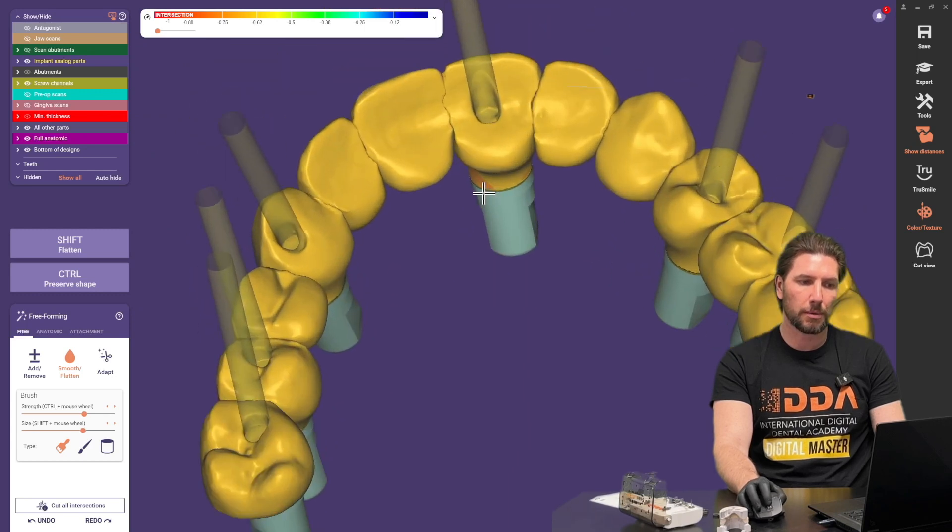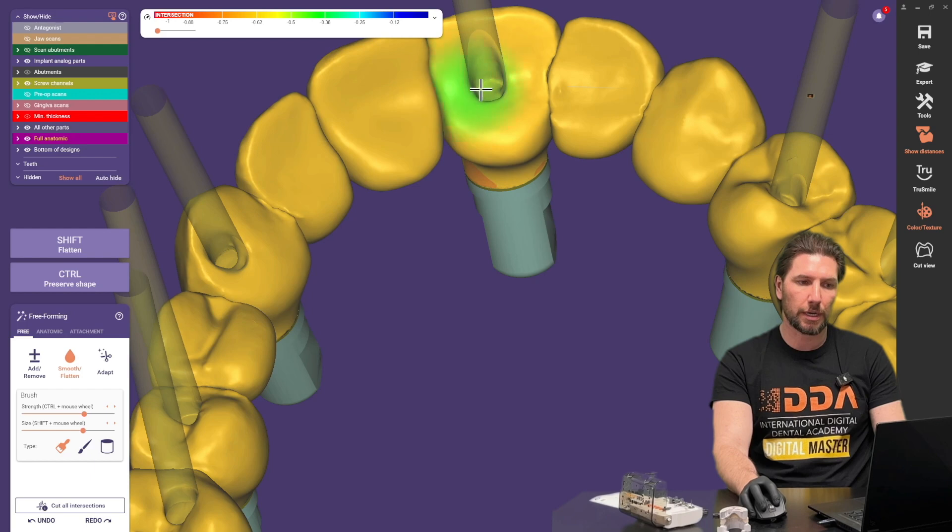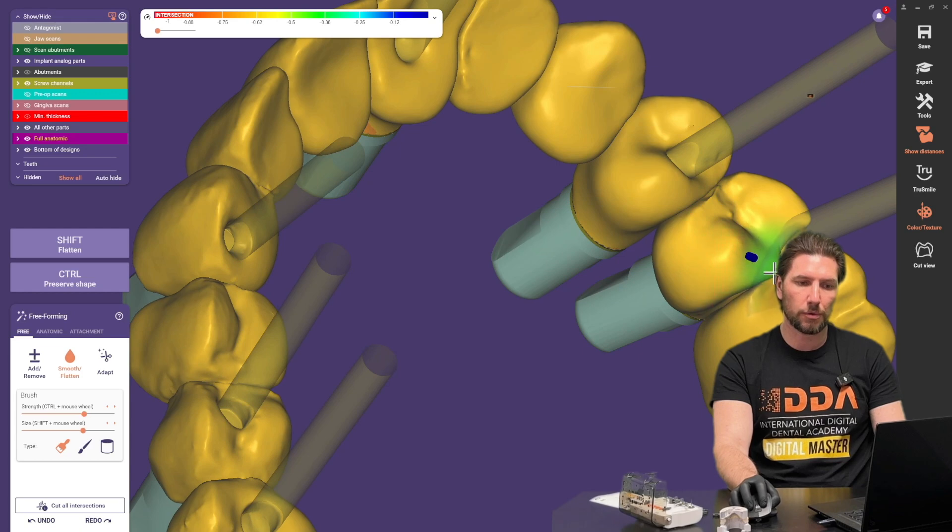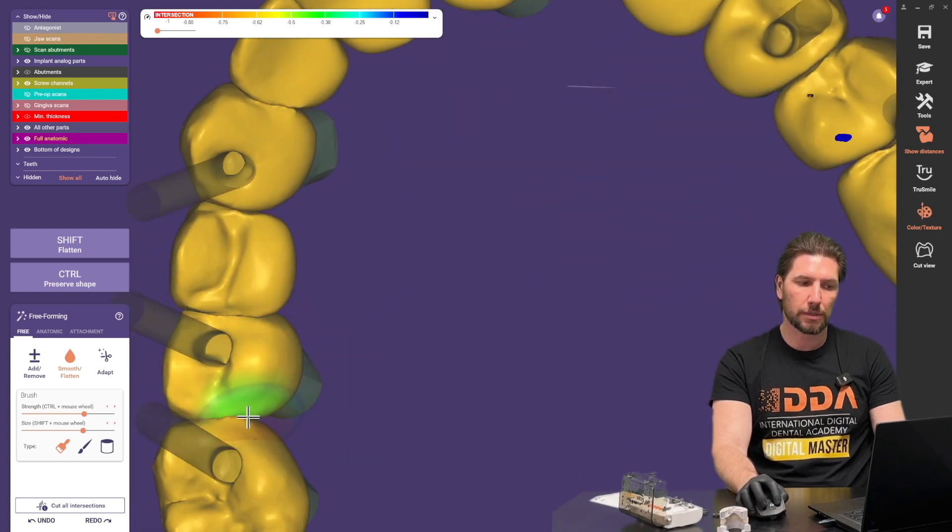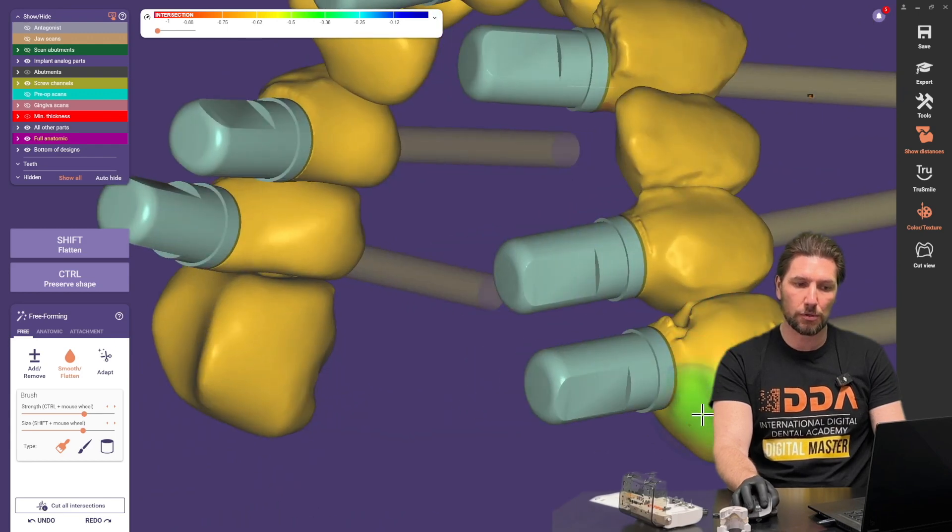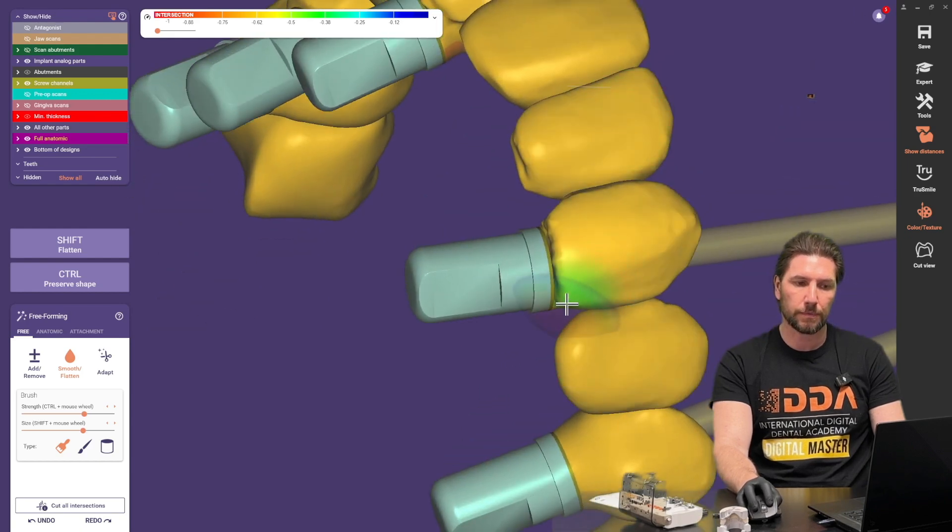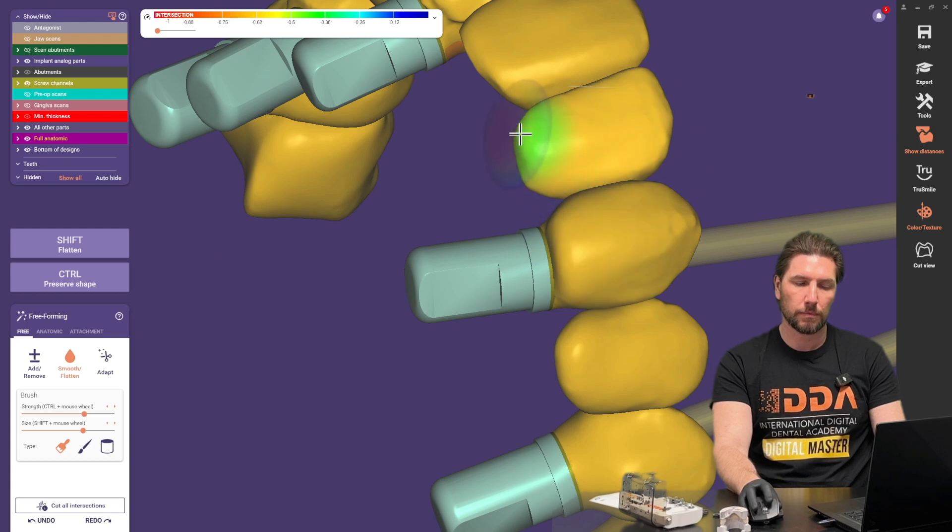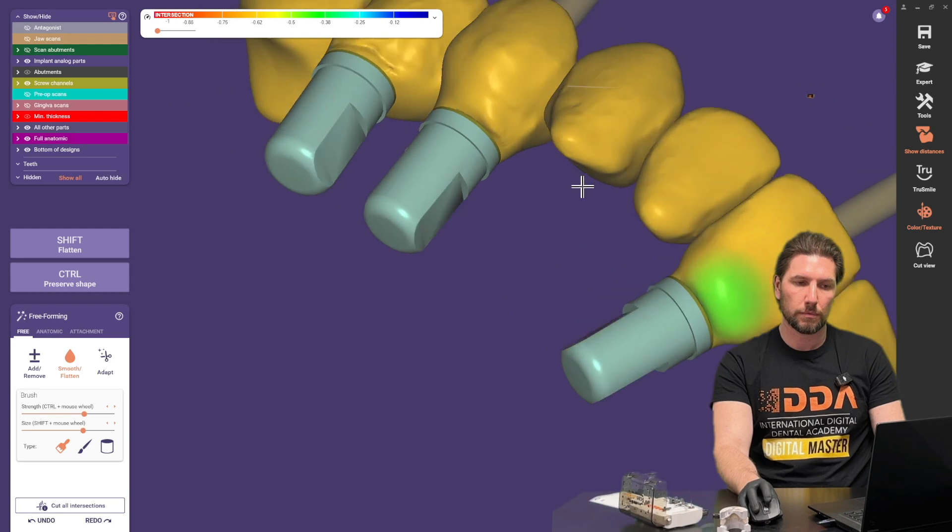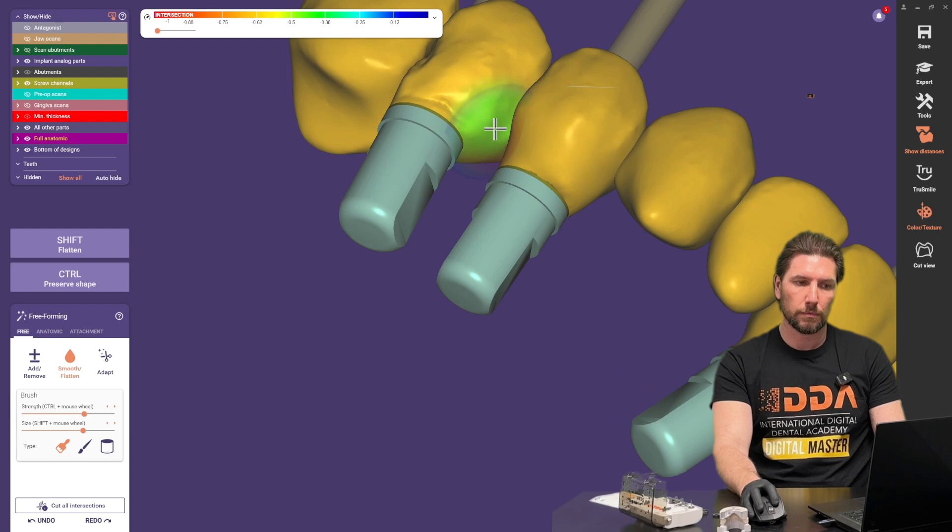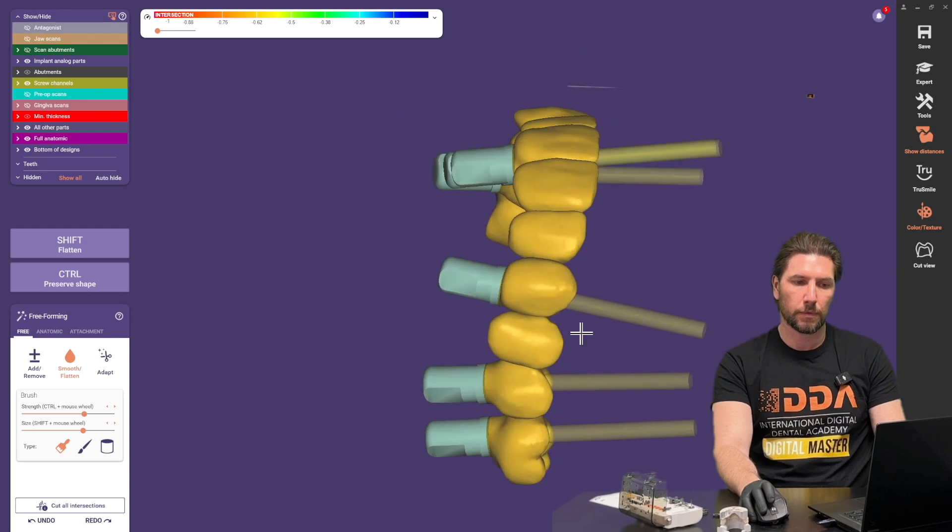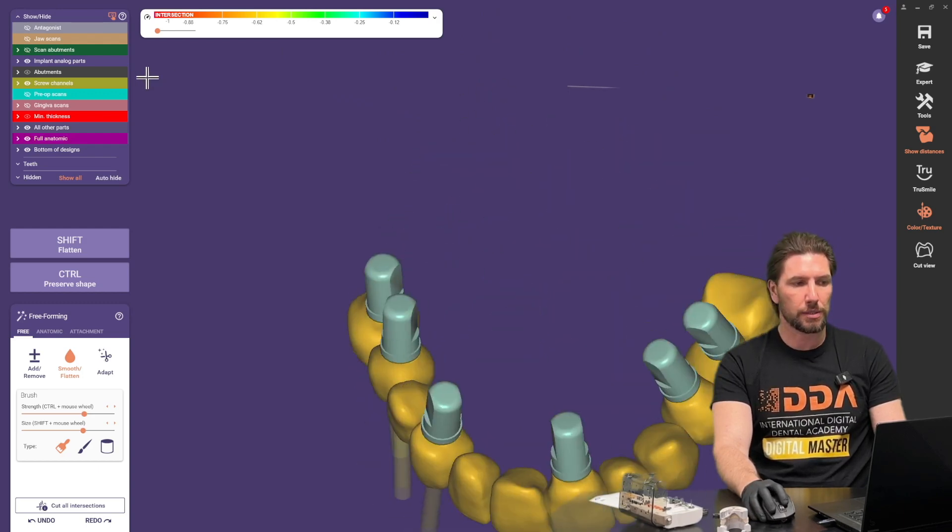You can see that's already made a big improvement I'm just going to smooth back the edges without holding down the shift key here but keep in mind all of this is going to get joined and this is just for a provisional that is just to give us an idea of how things are going to sit or you might do this for the same day surgery I've just been able to have something really nice and quickly designed so you can then print this off.